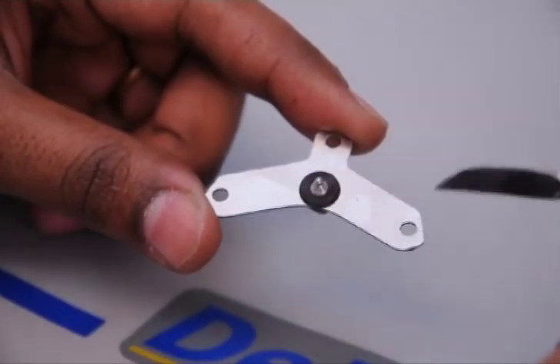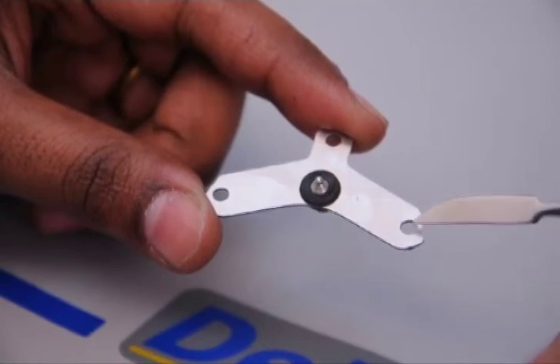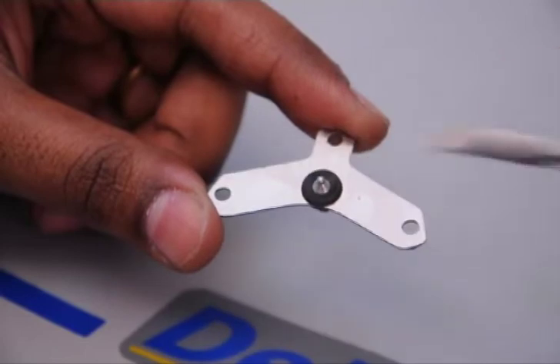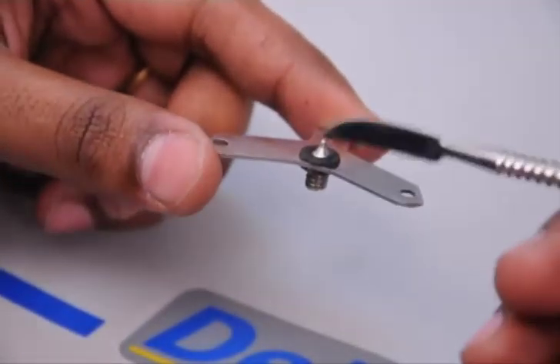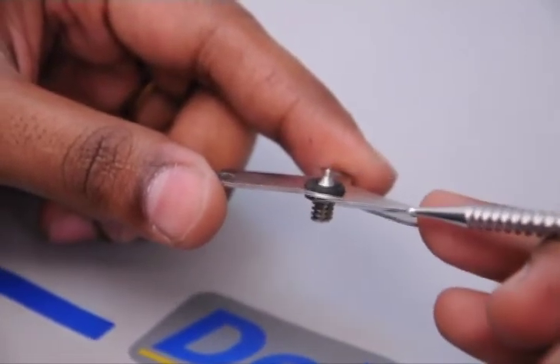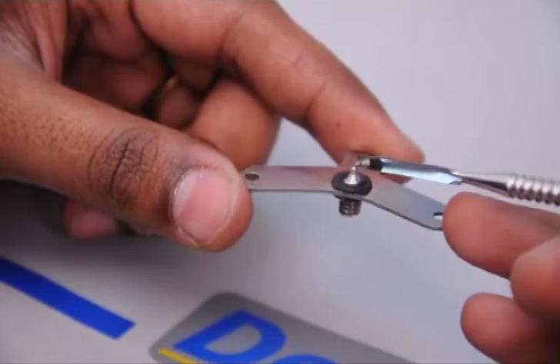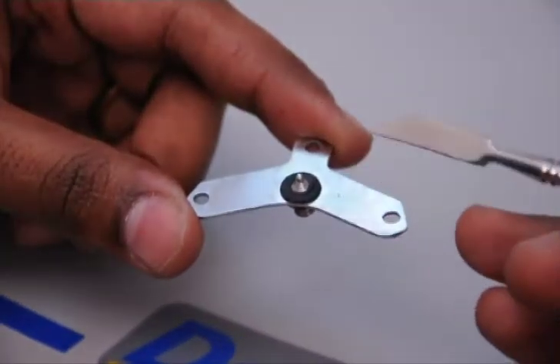This is the lower tracing plate, and the lower tracing plate is retained onto the lower denture base with the help of retentive slots. It also has another component called as the pointer. The function of this pointer is done with the help of a screw, and this pointer is what is going to give the arrow mark tracing onto the upper tracing plate.